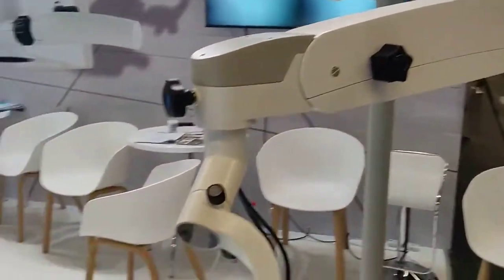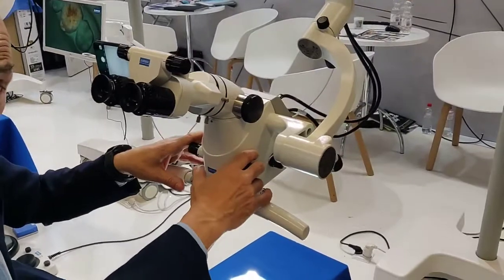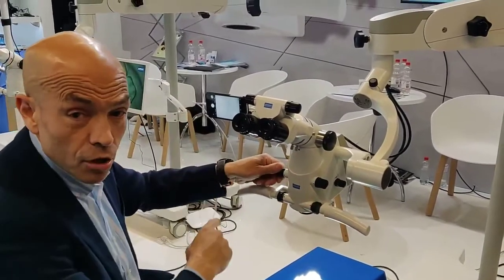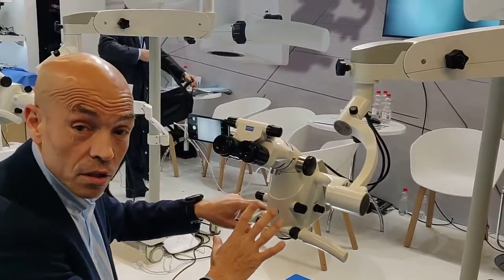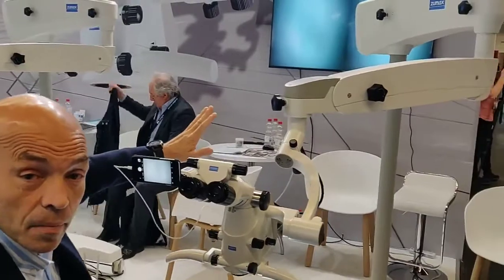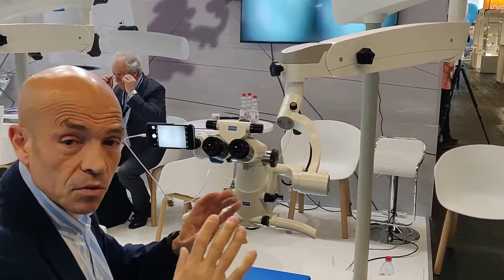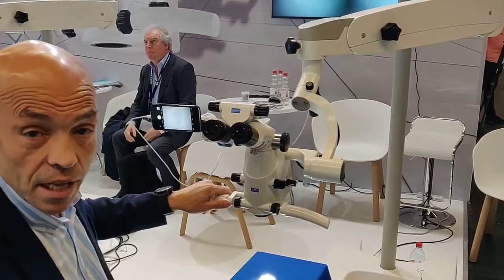Another very unique feature is that we have inside here the 3D camera, so we can see in 3D. It's a pity that the video is not the right one here, but we see in 3D and — most importantly — we can record in 3D. So when we have this in 3D on the SD card, we can then make some demonstrations, some training, some instruction directly with the 3D, which is really outstanding.